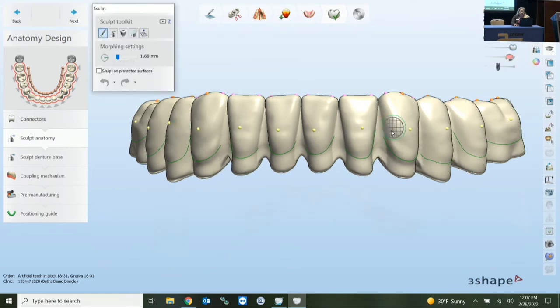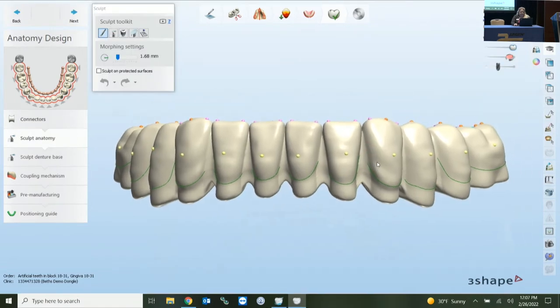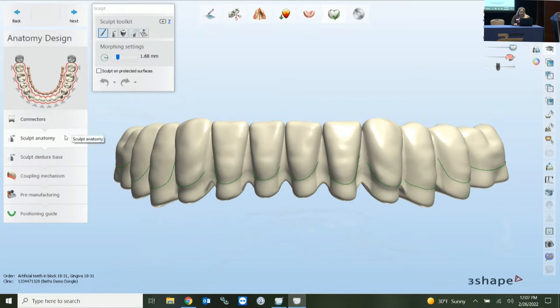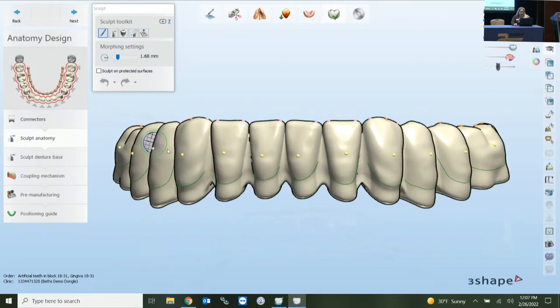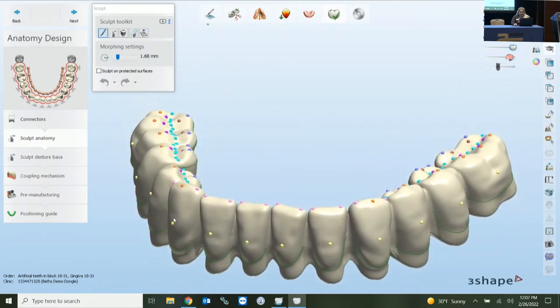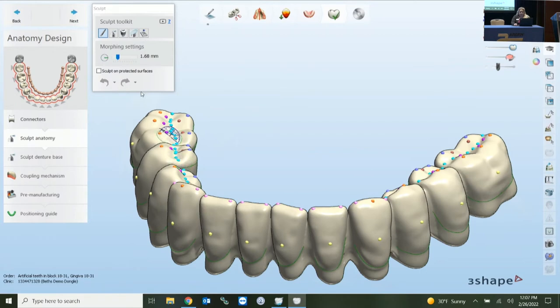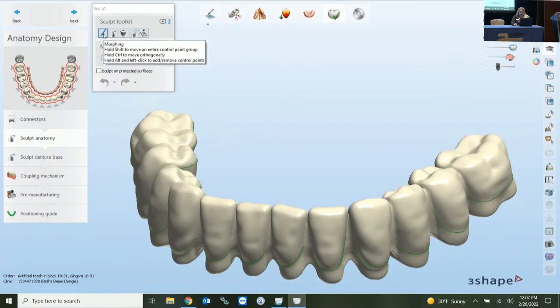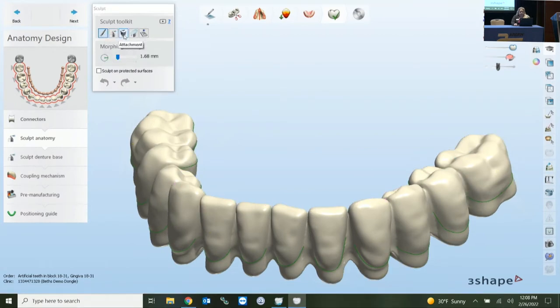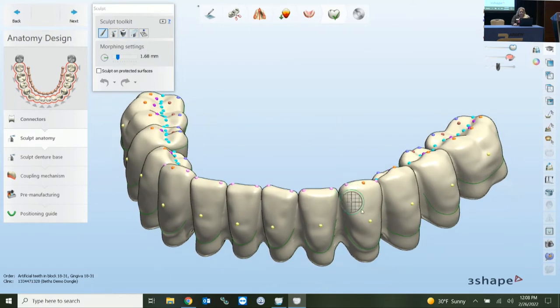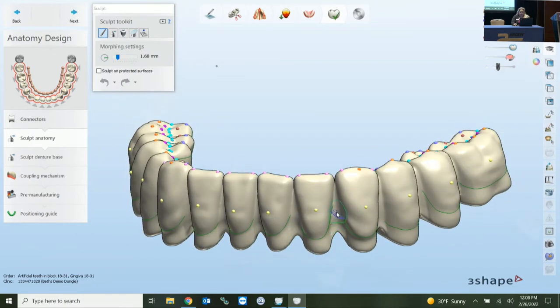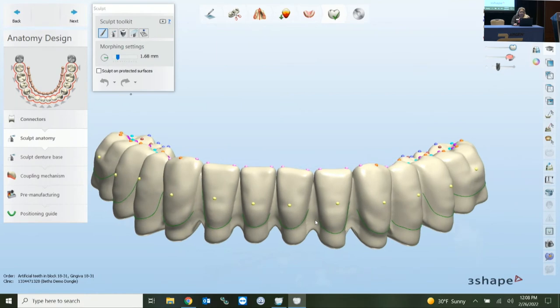Once your units are connected, you can activate your virtual articulator. In the Sculpt Anatomy step, the connector phase is now complete. You have options to sculpt anatomy here as well, now that everything is grouped together. In the Sculpt Toolkit you have morphing, wax knife settings, attachments, and plain cuts — all available. It's now kind of one piece, but you can come in and adjust in the embrasure area if you want.